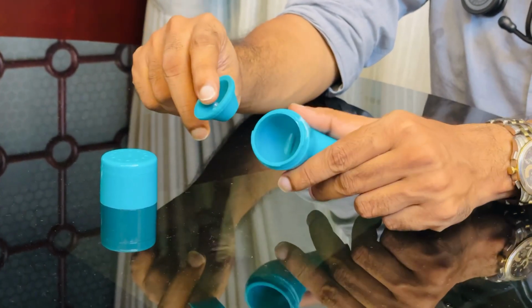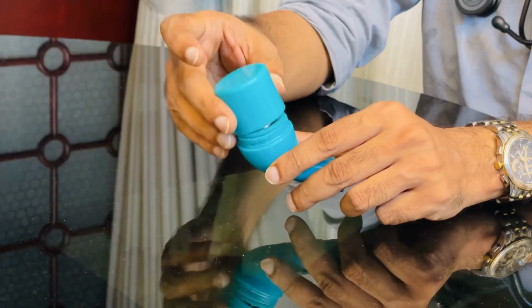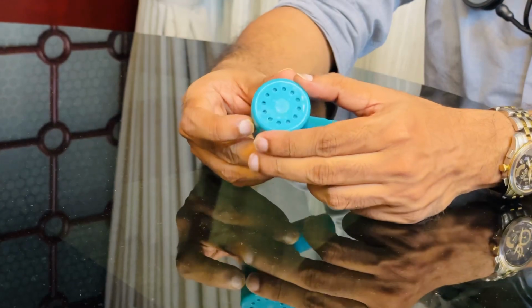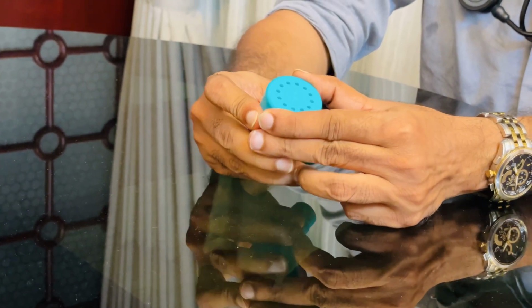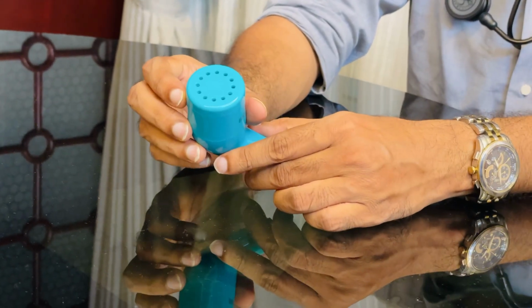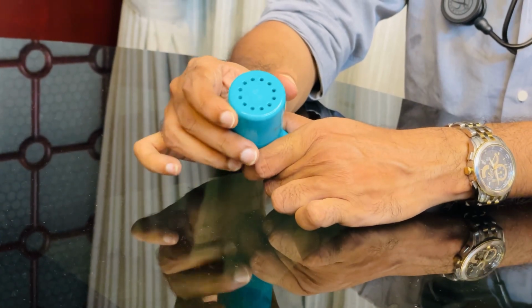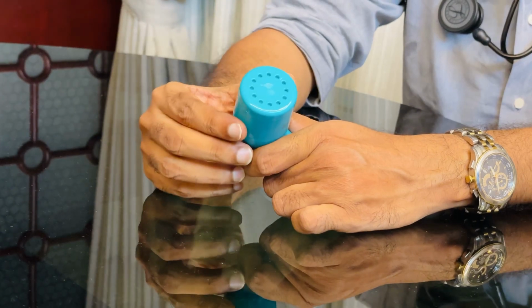Okay, it's a simple device. You just keep it like this, keep the iron ball and close it. That's it. And here you can see the vents. You are supposed to close this vent once each session is over, and open it once you start the session. In case you feel you need more resistance to expectorate, you can close it. As a result, it creates more positive pressure.